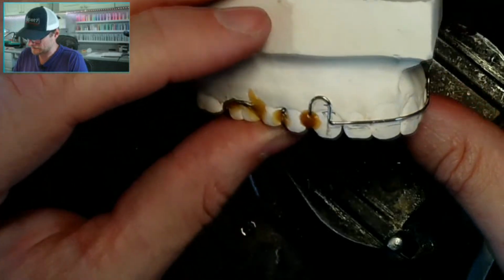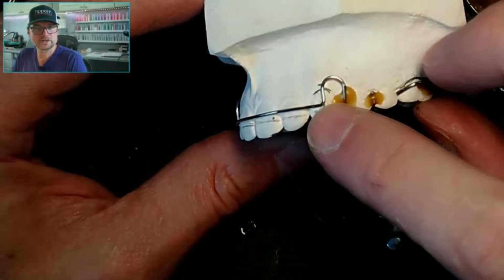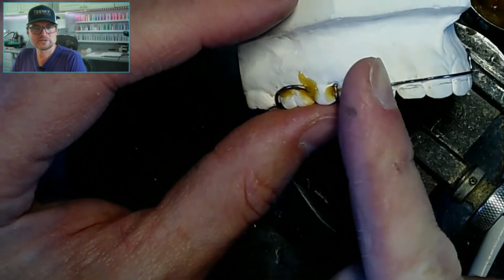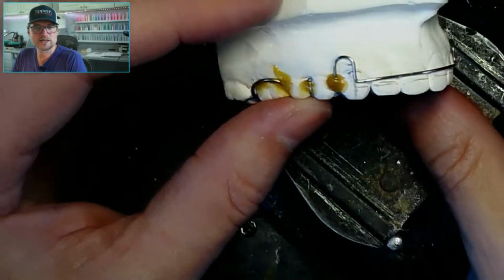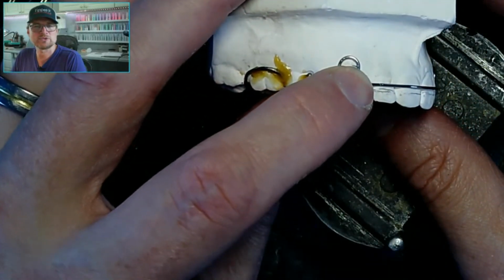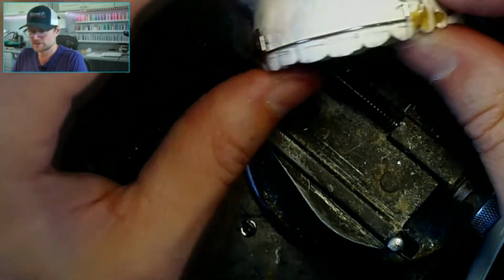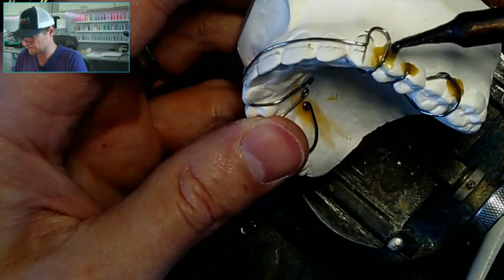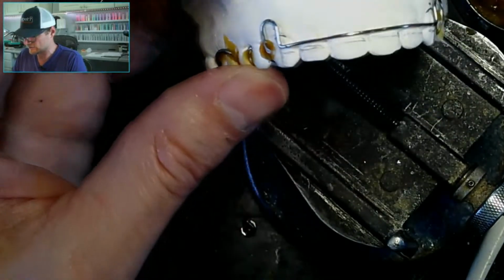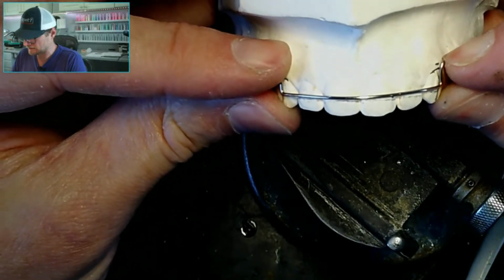Okay, so some things I see. This one I like. I think it's a perfect 90 degree. This one has a little bit of a tilt forward to it, so I might get marked off for that. And actually, look, my mark is, I'm too high above my mark there. So I actually need to adjust this labial bow. I don't think I can adjust that after the acrylic if they're that tall. So if I push this down to where it really needs to be.